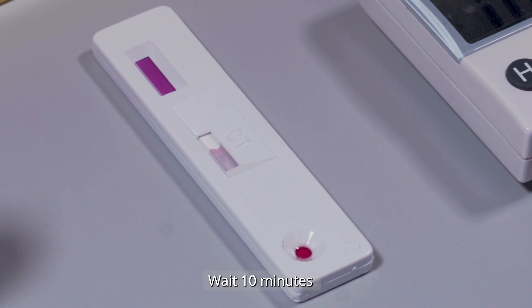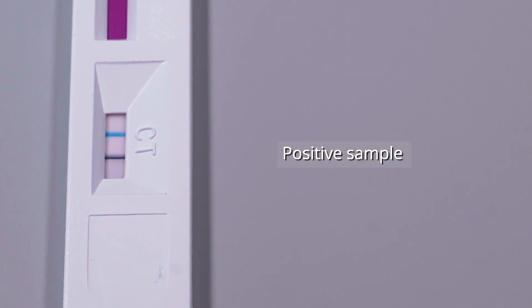If the blood sample is infected with African swine fever virus, two lines will appear in the lateral flow device: a blue and a black one. Color intensity may vary depending on the antigen concentration.